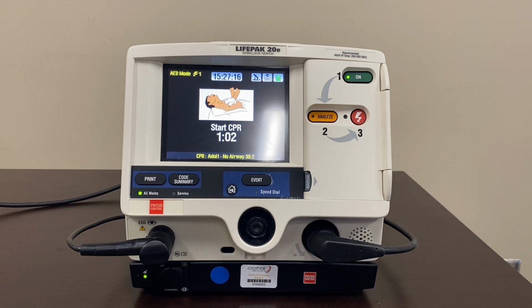Ventilate. Our recommendation would be to go in and make changes house-wide on the default settings to match what we are about to show you on the education AED. And that is to increase the volume to max capacity so that you can hear the metronome. Also to remove the voice prompts to ventilate the patient. You'll still be able to visualize a clock on the screen of the AED as a guide, but it won't verbally prompt you for those things, so that it doesn't create that confusion if the person that was sorting the code needs to alter the timing.